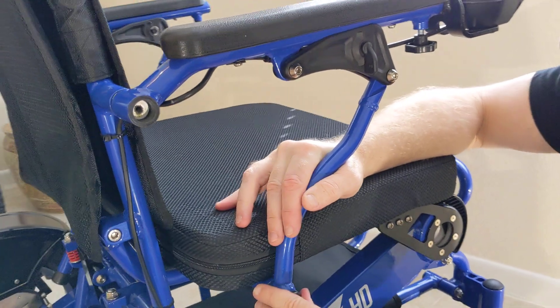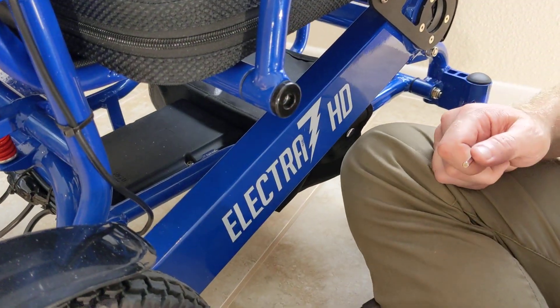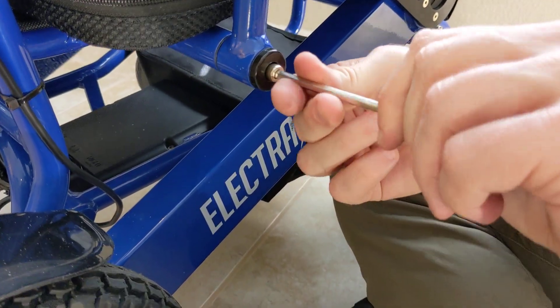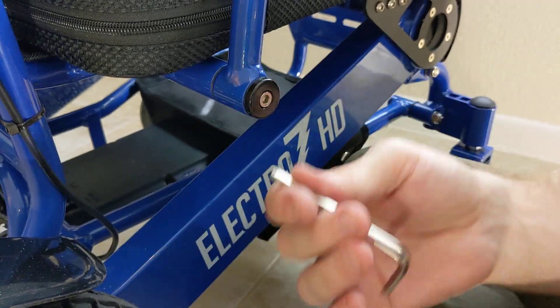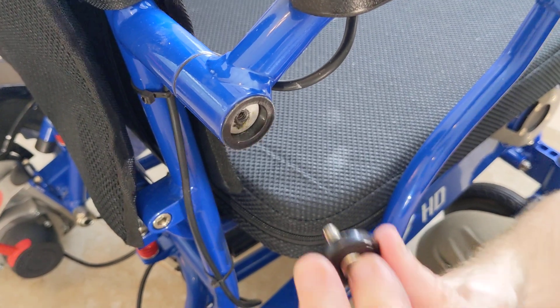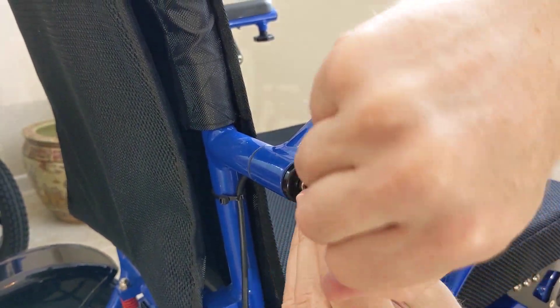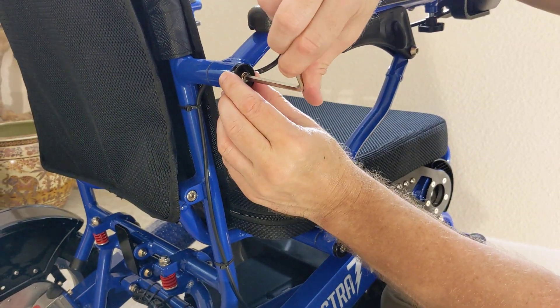You may want to have the joystick off when you do this, simply because the joystick adds more weight to the front of the chair. Now that this is on, this is more simple to work with than putting an armrest spacer kit on, simply because there's less space. We're reducing the armrest width from 24 and a half inches to 21 inches from the factory. I'm not forcing this — it's tight, but I really don't want to force this, especially if I plan on exchanging these spacers on a frequent or semi-frequent basis. So don't say you weren't warned — it's very important. Nice and easy. It's snug but not too snug. I just want to make certain it's all the way in.